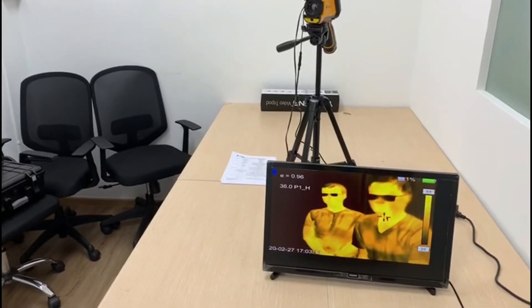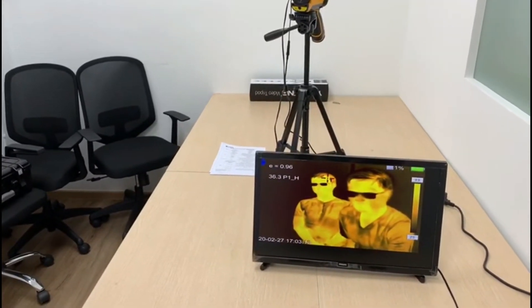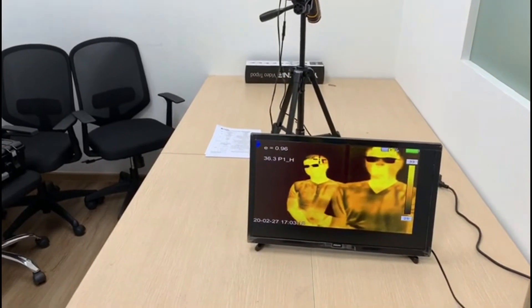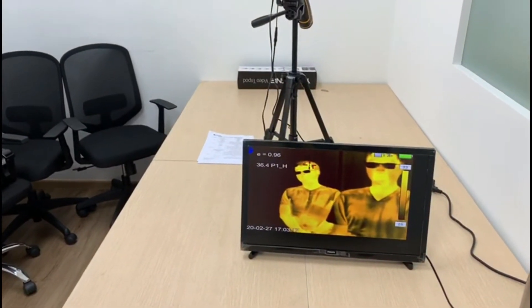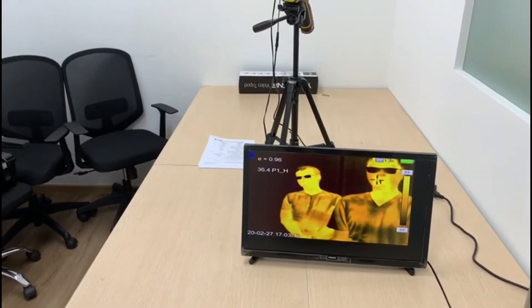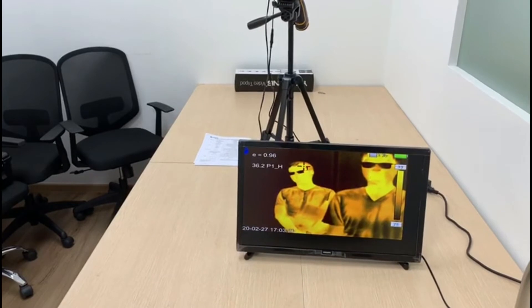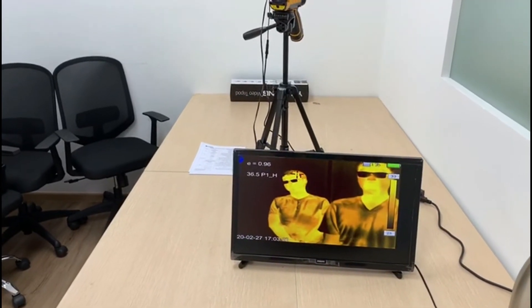The camera will capture the image, so if an investigation is needed, there will be an image for your reference. This summarizes the product demonstration. Thank you and we look forward to your inquiry.